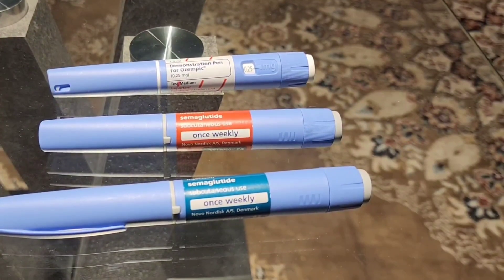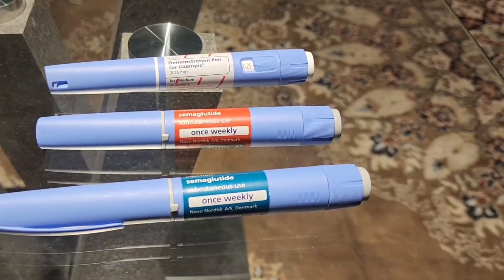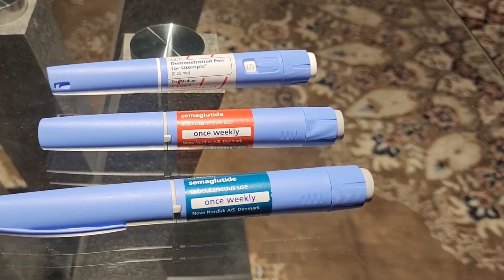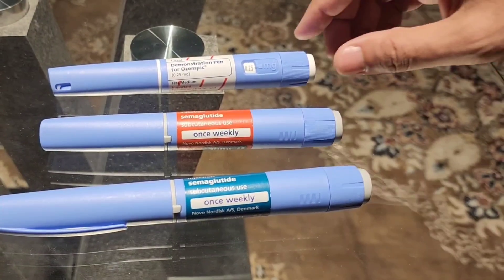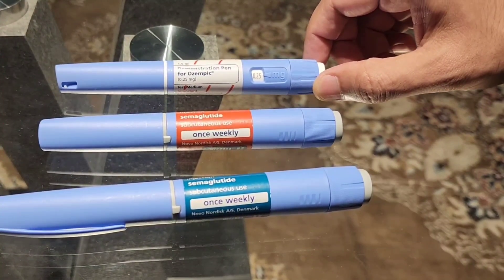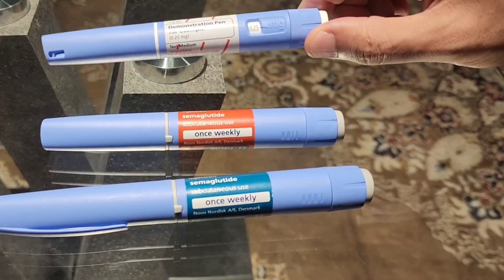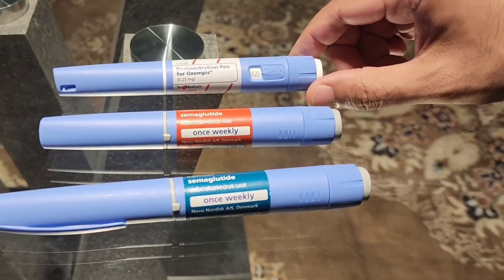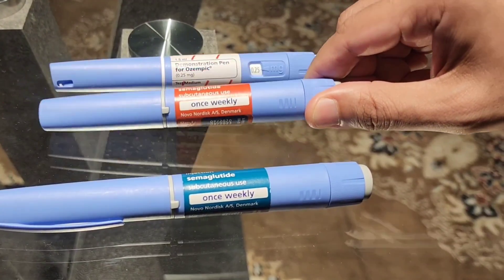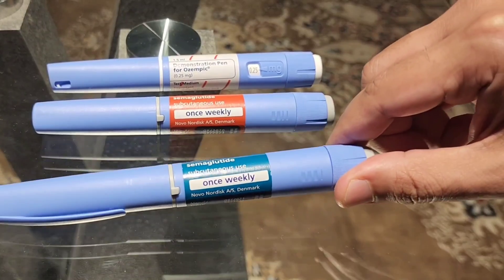Today I am going to tell you how to take different dosages of Ozempic from a single pen. Normally Ozempic comes in three different pen devices: this is the 0.25, this is the 0.5 milligrams, and this is the 1 milligram.